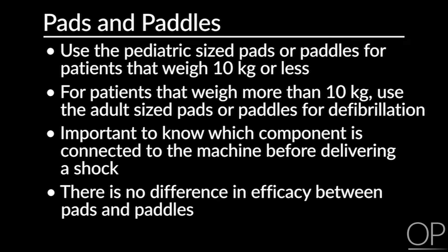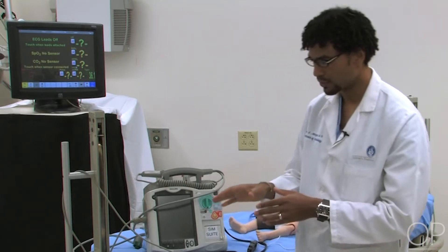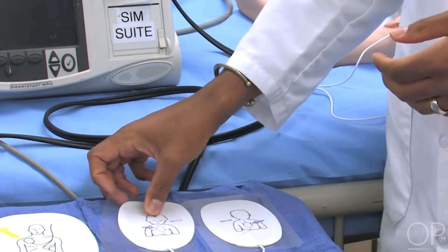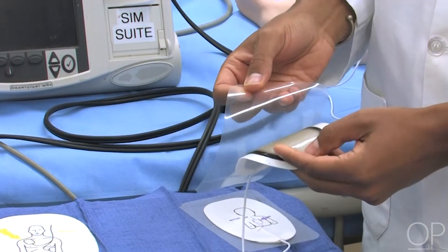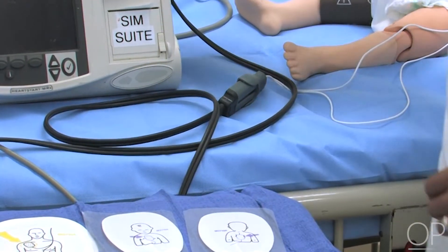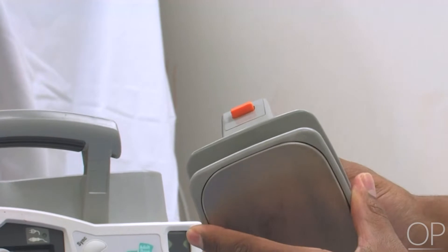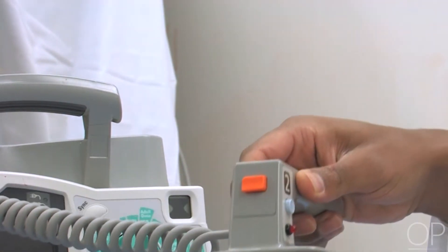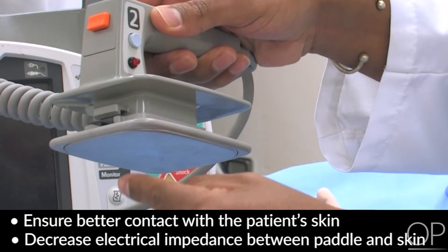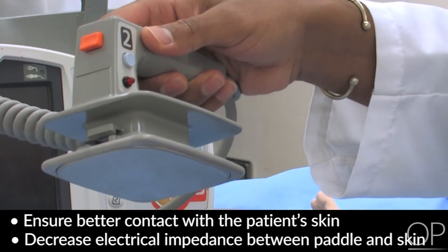There is no difference in efficacy between paddles and pads, so you can use whichever you are most comfortable with. It's extremely important, regardless of whether you use pads or paddles, to ensure very good contact with the patient's skin. Pads have an extensive sticky surface that conforms to the patient's shape. With paddles, we apply an electro-conductive gel before placing them on the patient's body. The gel ensures a better footprint of contact and reduces the impedance or resistance to electrical flow at the skin surface, ensuring a greater, more effective charge is delivered to the myocardium.